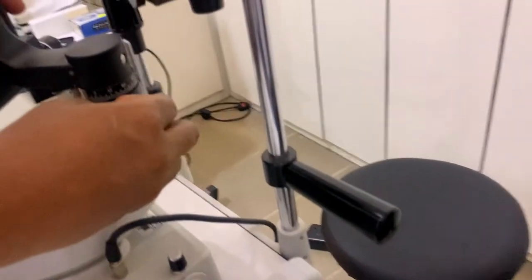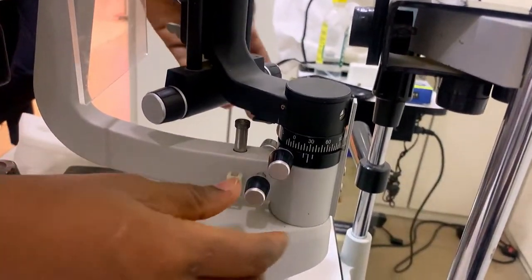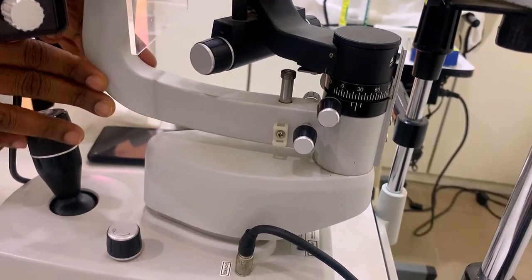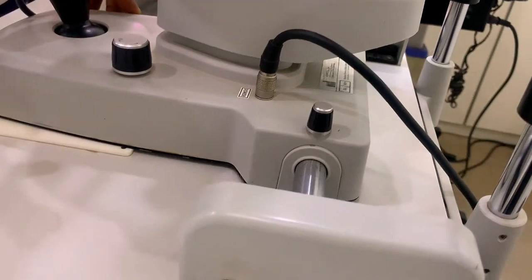After the gliding plate, the next thing is the lock screws. This is the illumination system lock screw — it locks up the illumination system, avoiding movement. This is the observation system lock screw — when locked, it makes the observation system not move. And this is the base lock screw — it locks the slit lamp biomicroscope to the table so it won't move. But when you open it, it begins to move.